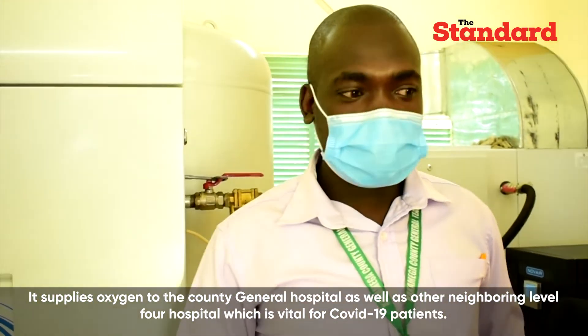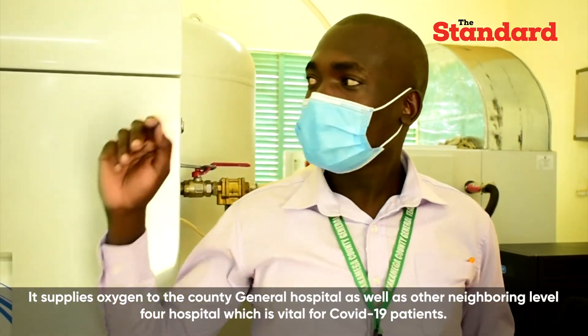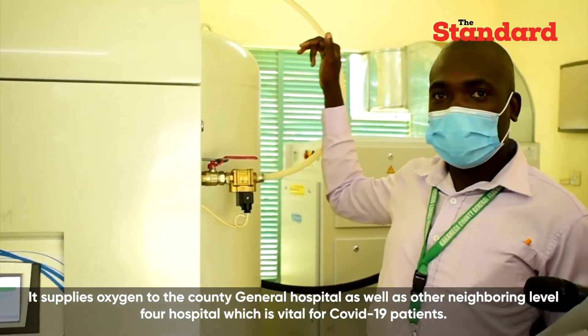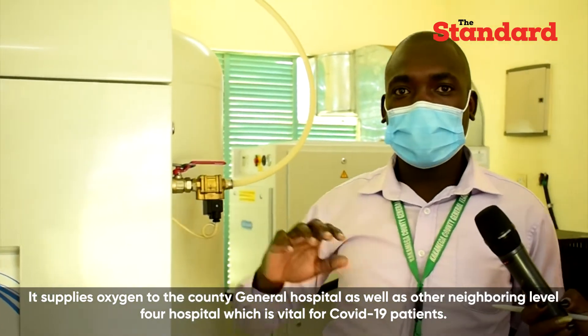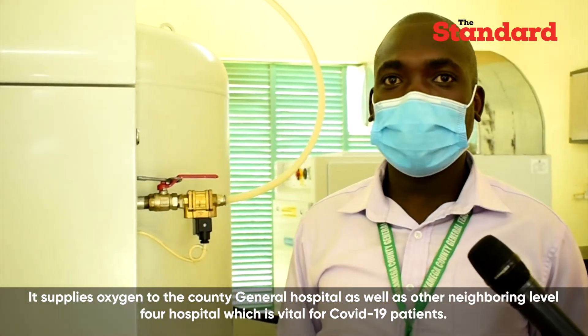That's basically ordinary air stored from that tank. From that point, this air passes through the dryer, whereby all moisture is removed from the air.